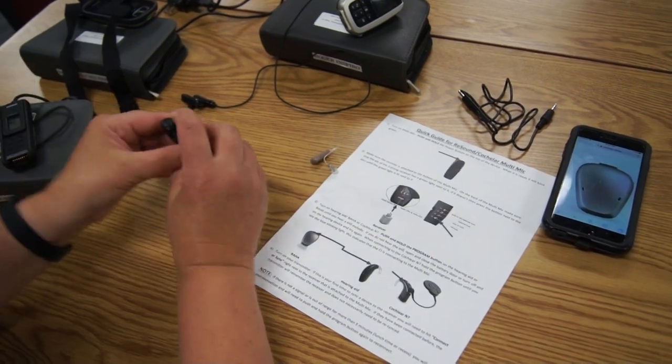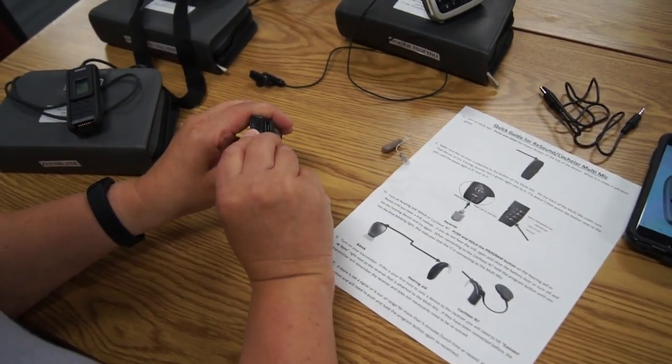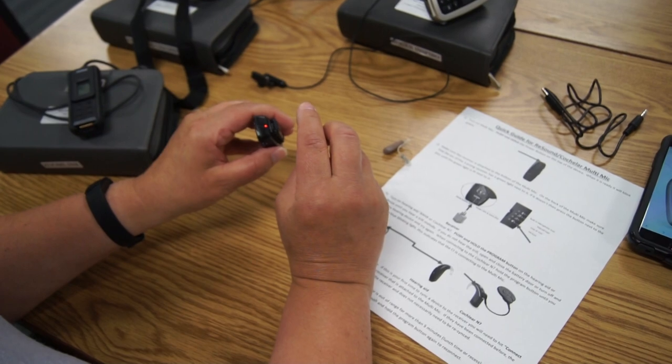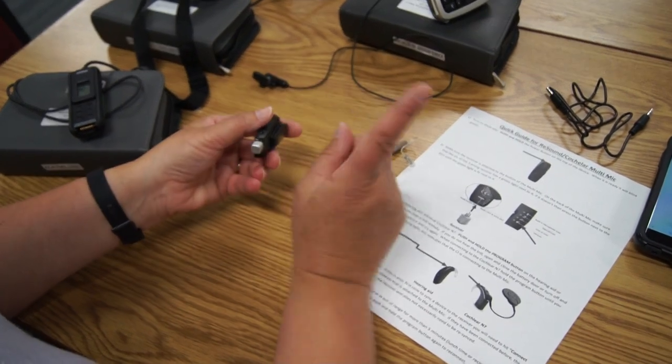To shut it off, you just press that button at the top. It'll go red and now it is off.